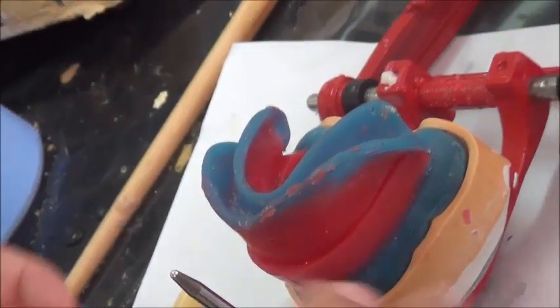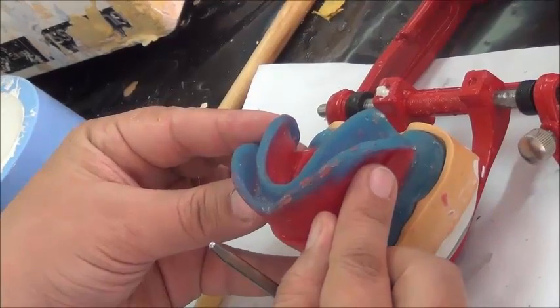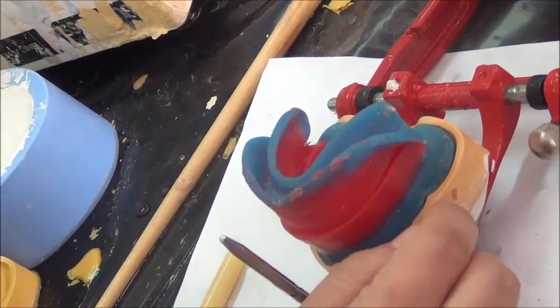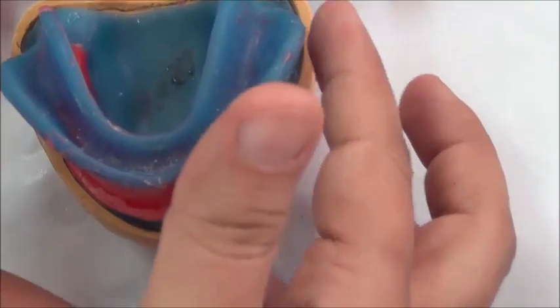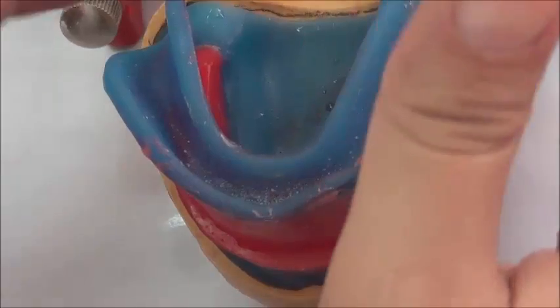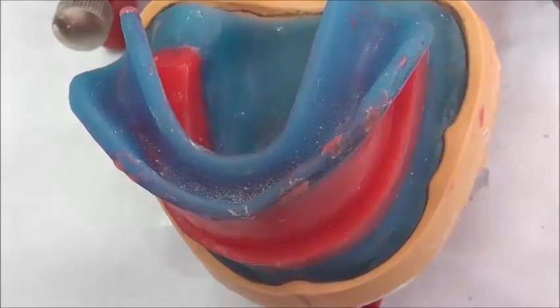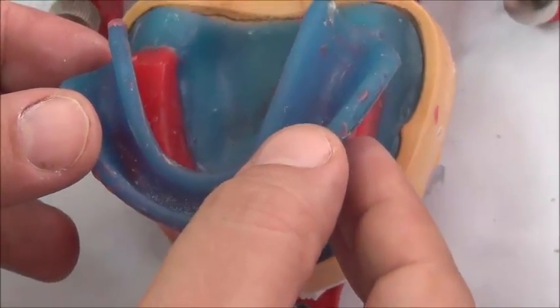So first of all, we take out the cast. We're using the wax rim only. We're trying to center the lower wax rim over the upper. And how do we verify it? If we look vertically here, we are checking that the base plate from the left and right is centered over the lower cast as well. So this is the lower base plate, and this is the upper cast already mounted on the articulator. We make sure it's not tilted to the left, not tilted to the right, not going back, not going too much further anteriorly.